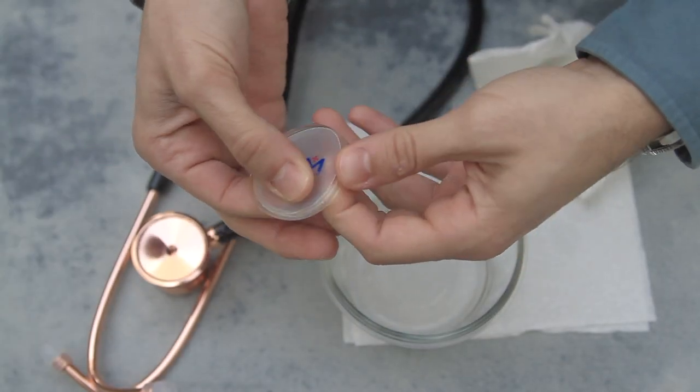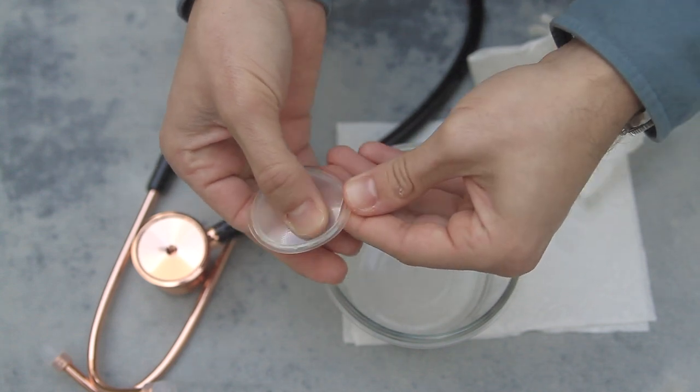Slide the diaphragm into the ring and make sure that the diaphragm is secured without any edges peeking out.